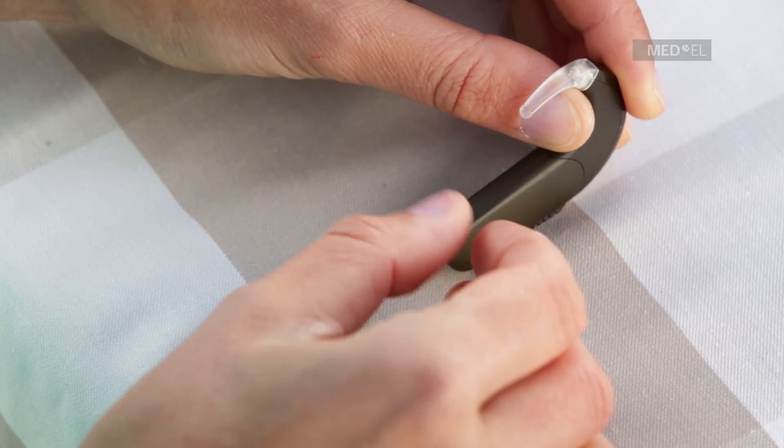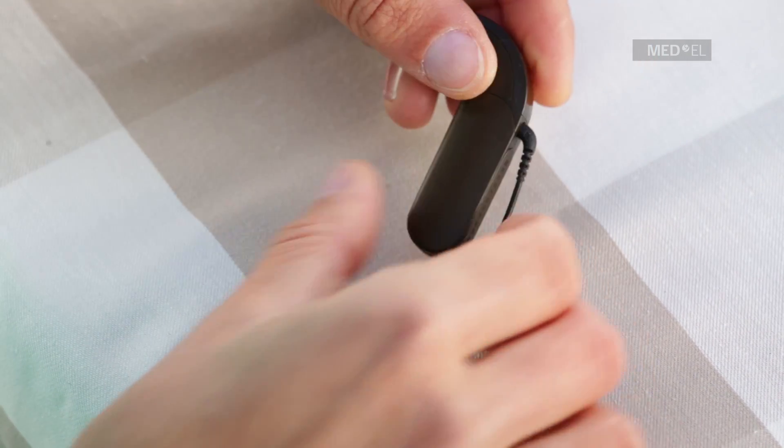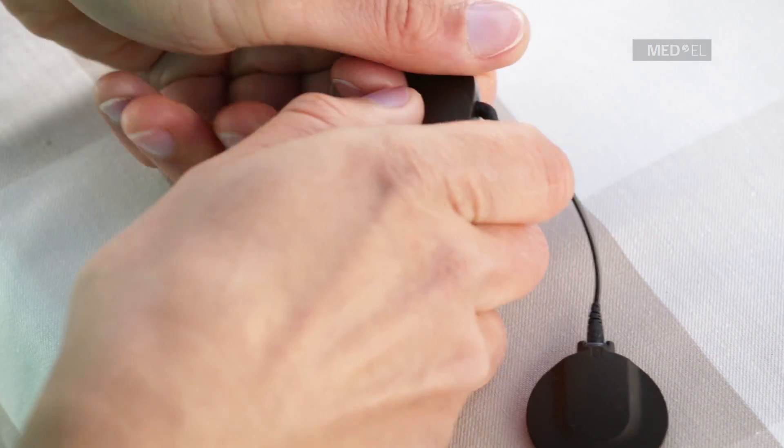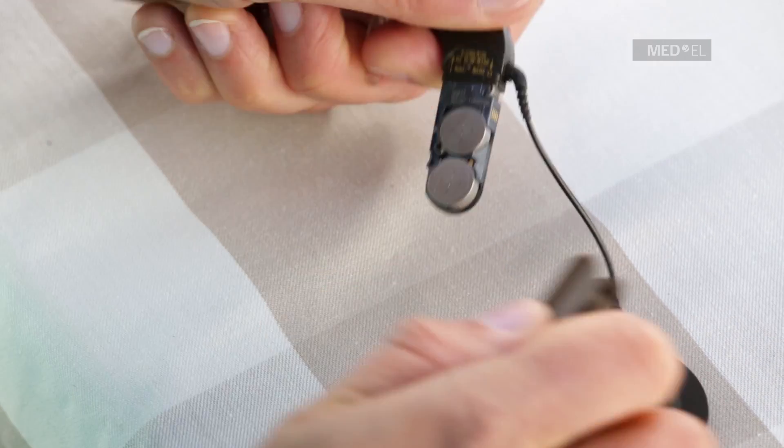Be careful not to use too much force when you turn the lock. Pull back and completely remove the battery pack cover.